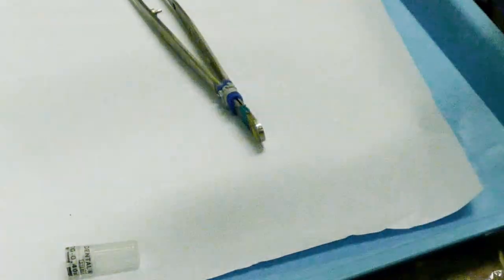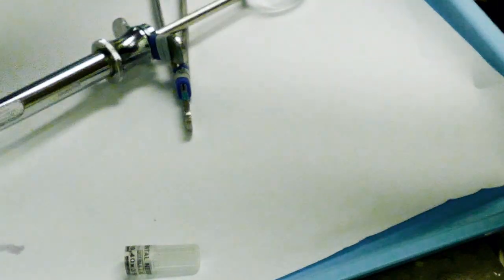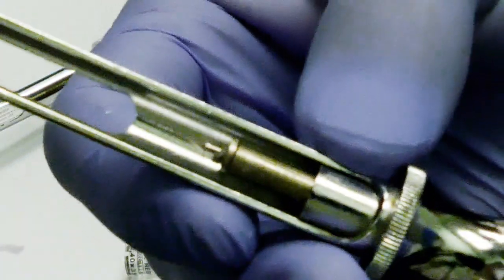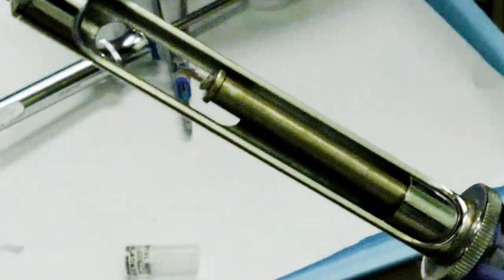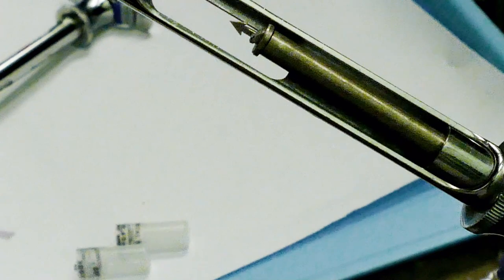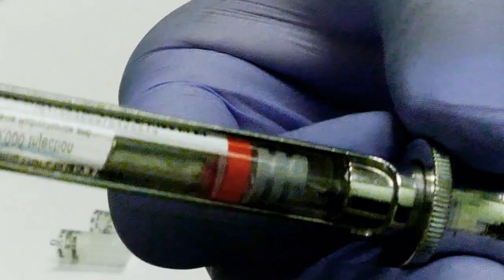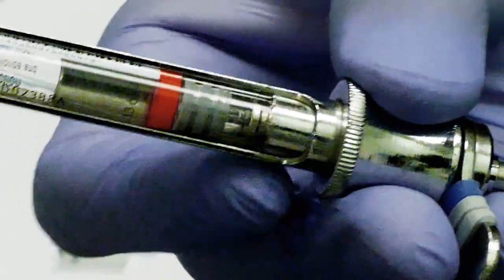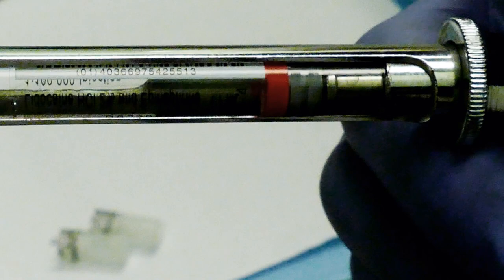Now we'll make sure we give this a good squeeze to engage our harpoon. You can see that sharp point right there that pierces the back of our cartridge. Give it a good squeeze so it engages. Now since this is engaged, as I move that harpoon in and out, it's moving the plunger with it because it's locked into it.